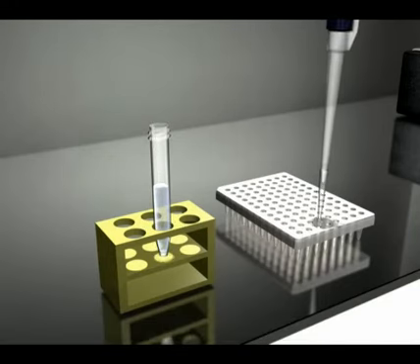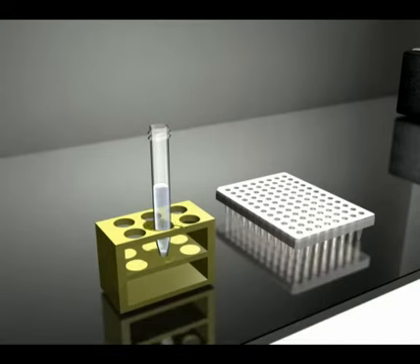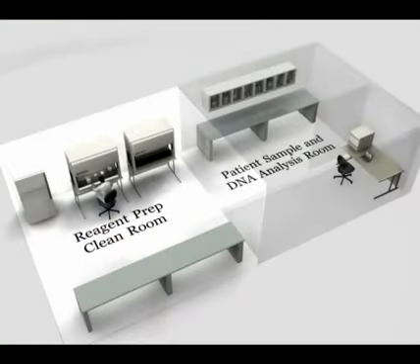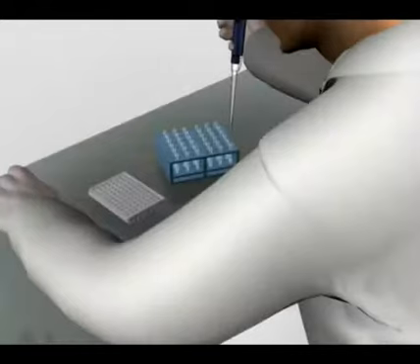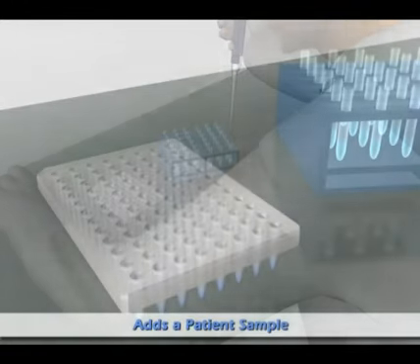Once the preparation steps are completed, the real-time PCR plate can be taken into a second room where patient DNA samples are added and medical diagnostic testing can begin.